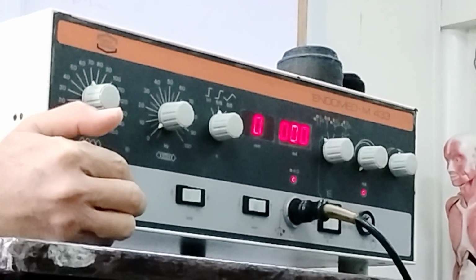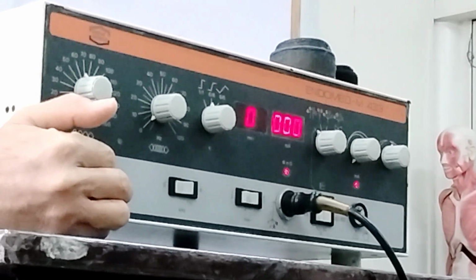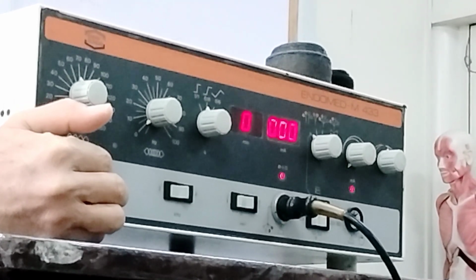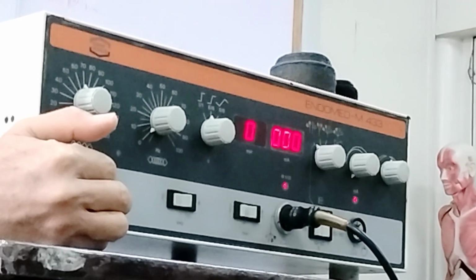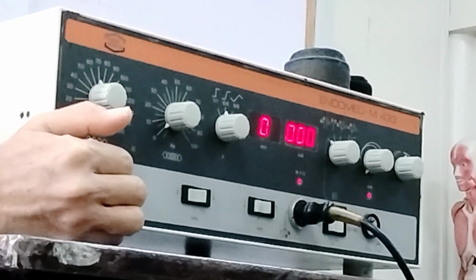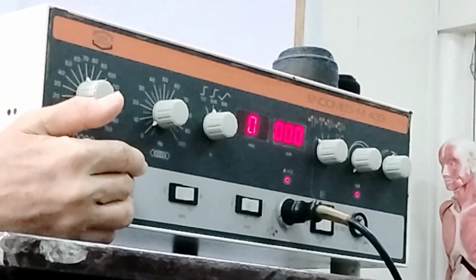You have several values there for the beat frequency or your amplitude modulation frequency. You mentioned like 90 to 100 hertz constant, 1 to 10 hertz constant, 1 to 10 hertz rhythmic, 90 to 100, etc. You can use this as a source of your values in selecting the AMF.